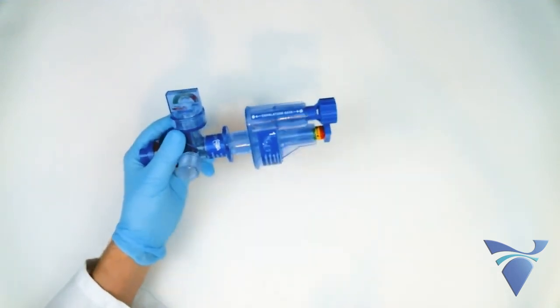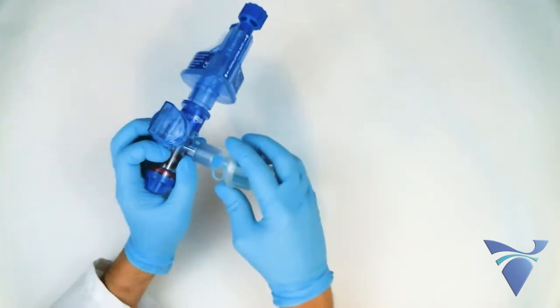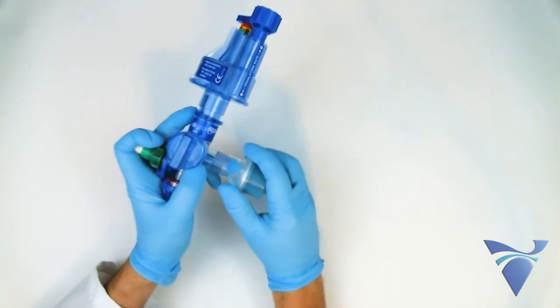You may also wish to attach filters. The mouthpiece of the GoToVent can accommodate an HME filter, which will filter both inhalation and exhalation.